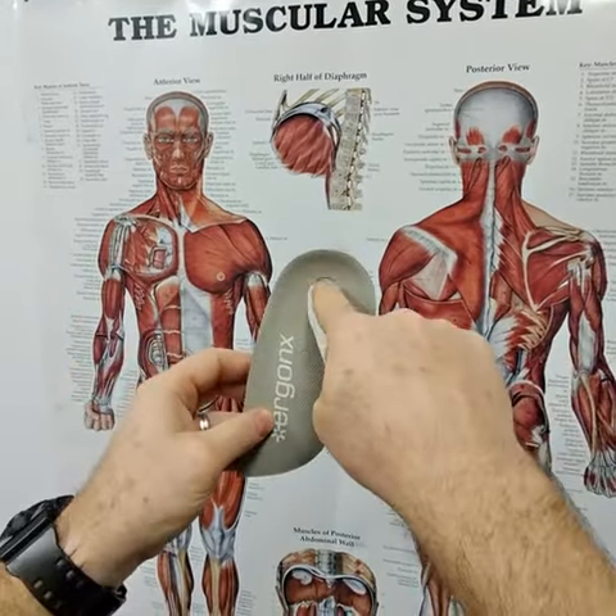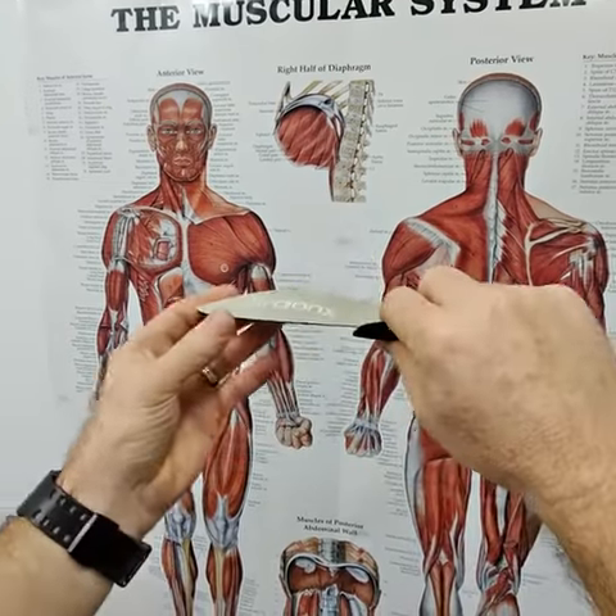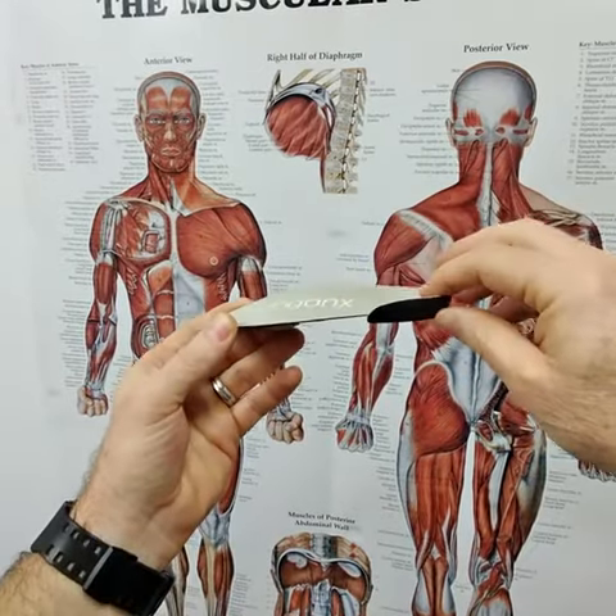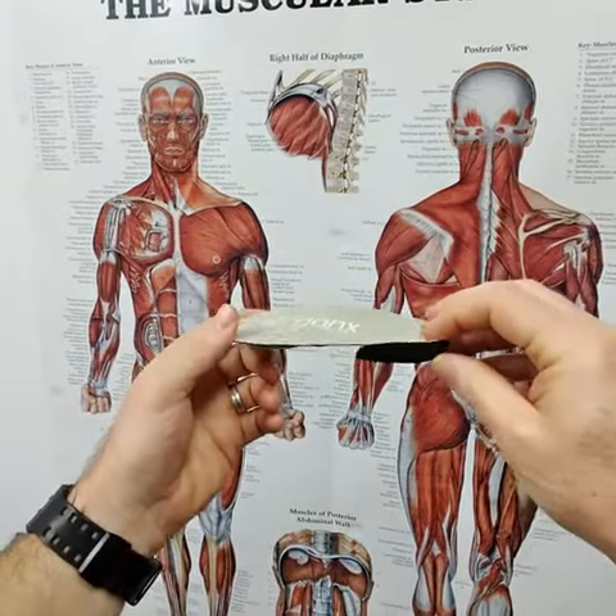It's got this hookback cutaway, which helps your heel to sit right down in the shoe so you get no slip out and there'll be less slipping and slopping around in your shoes.